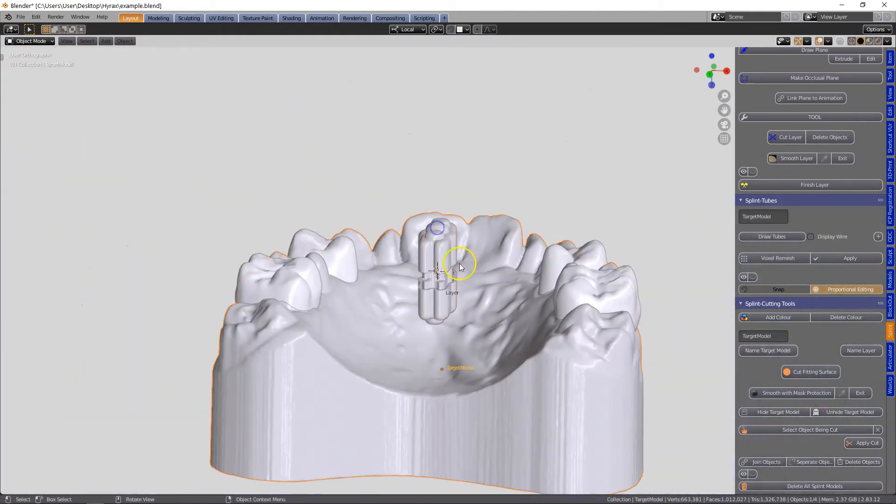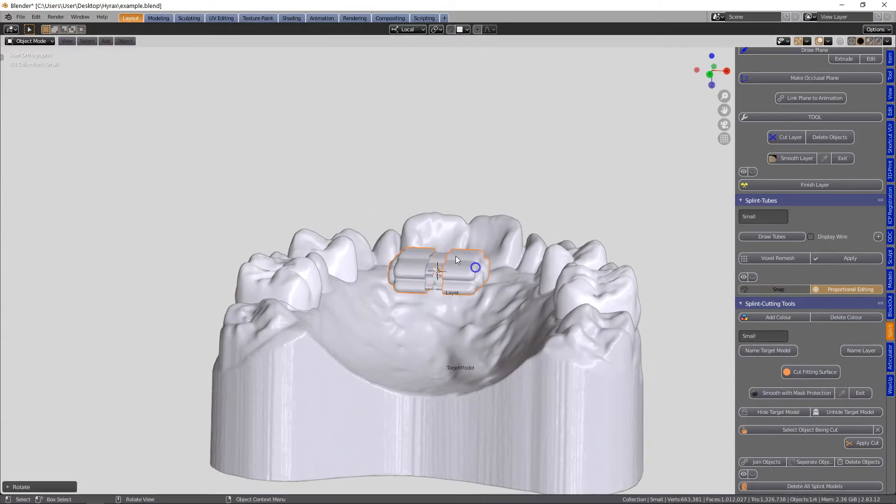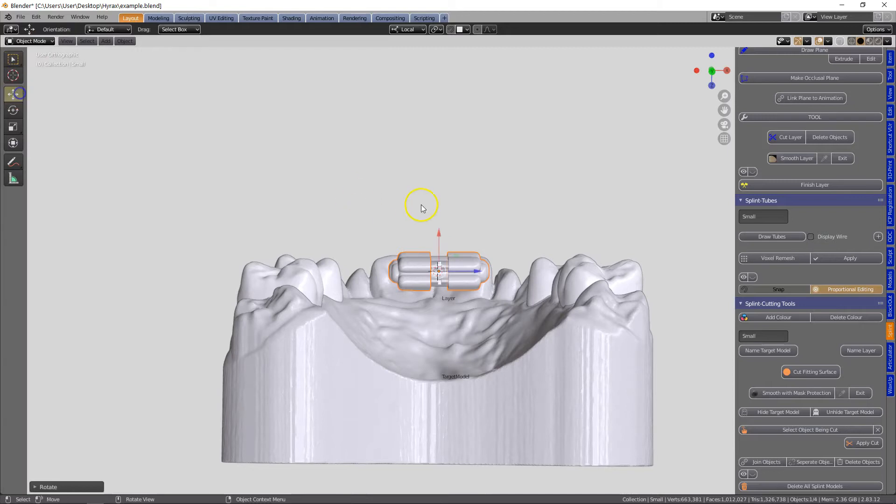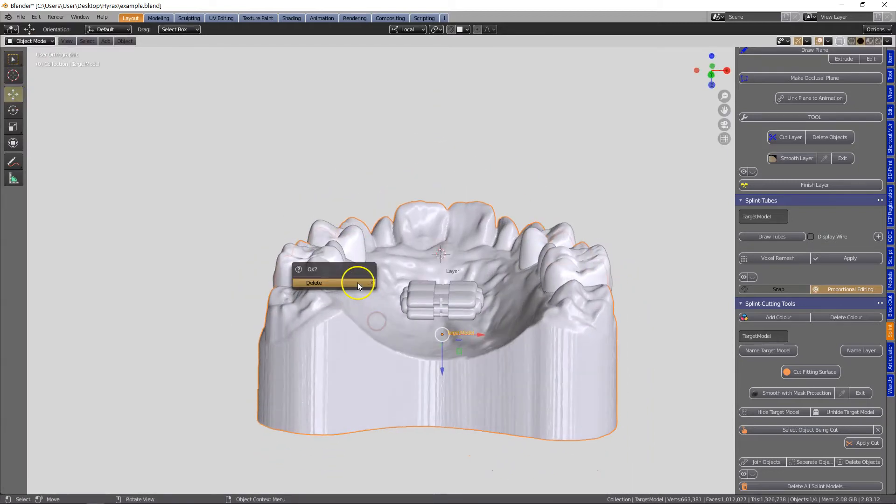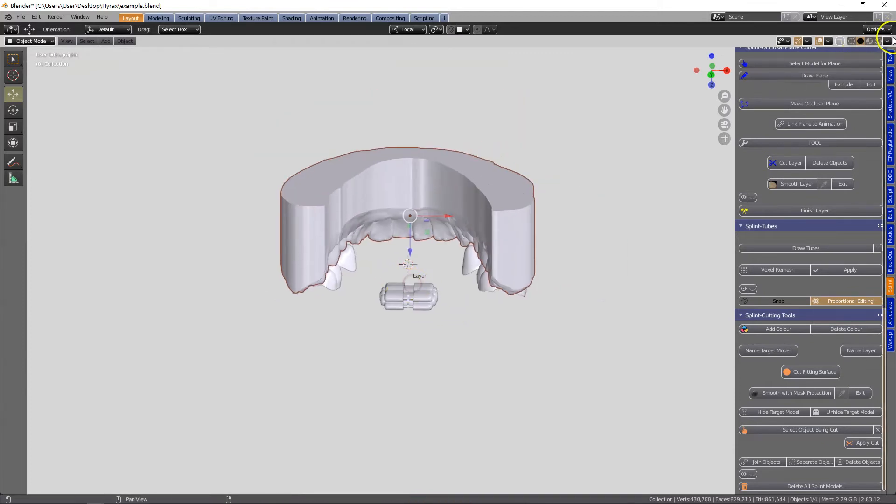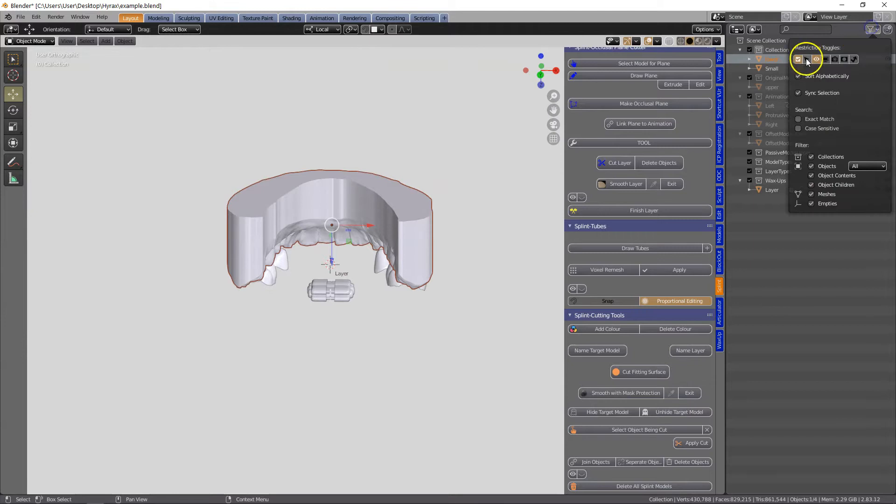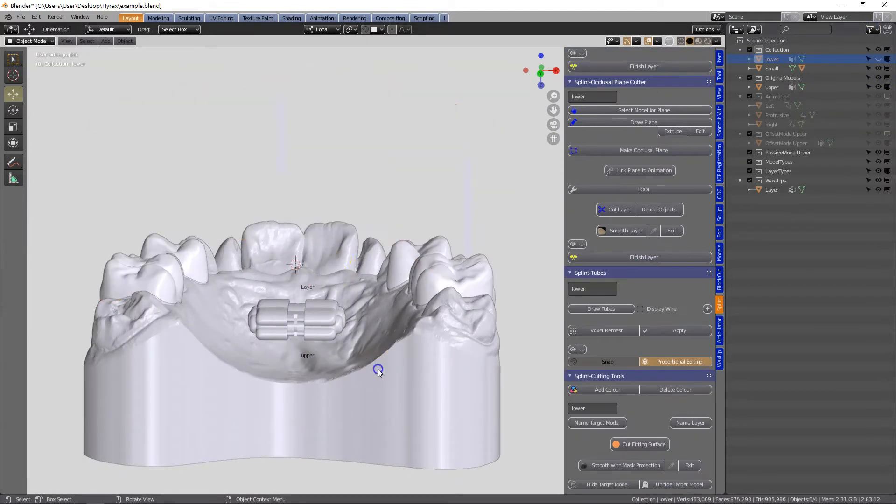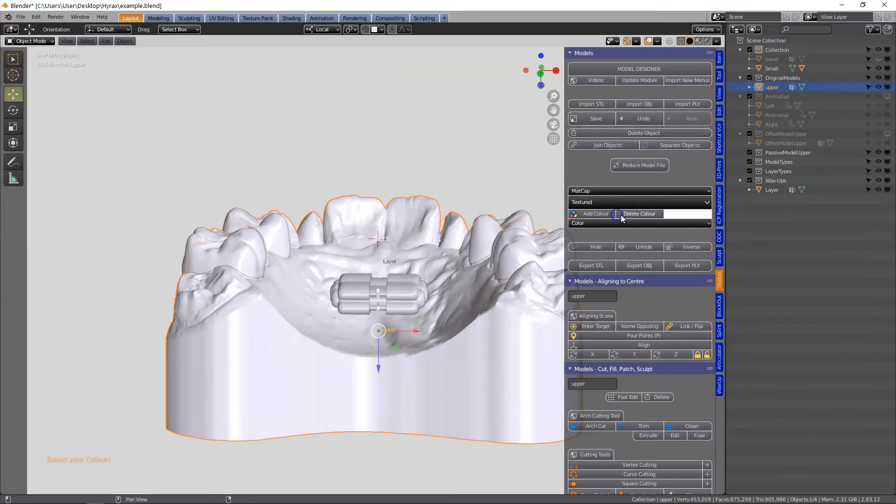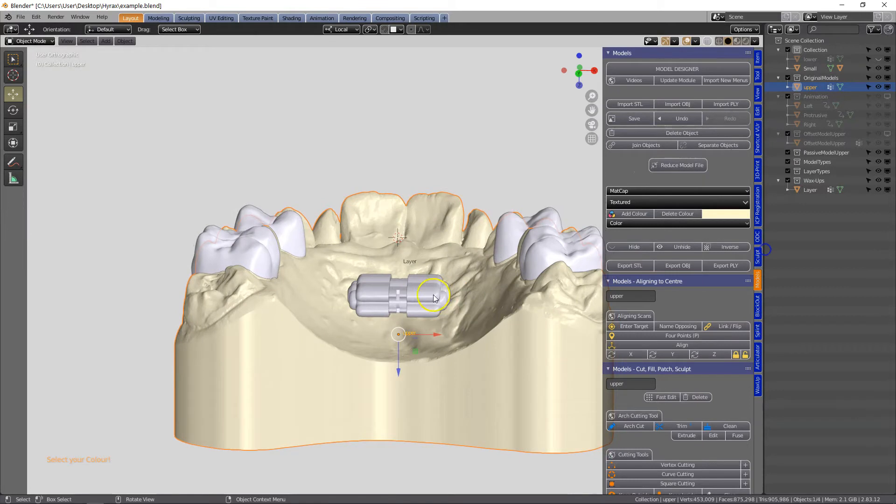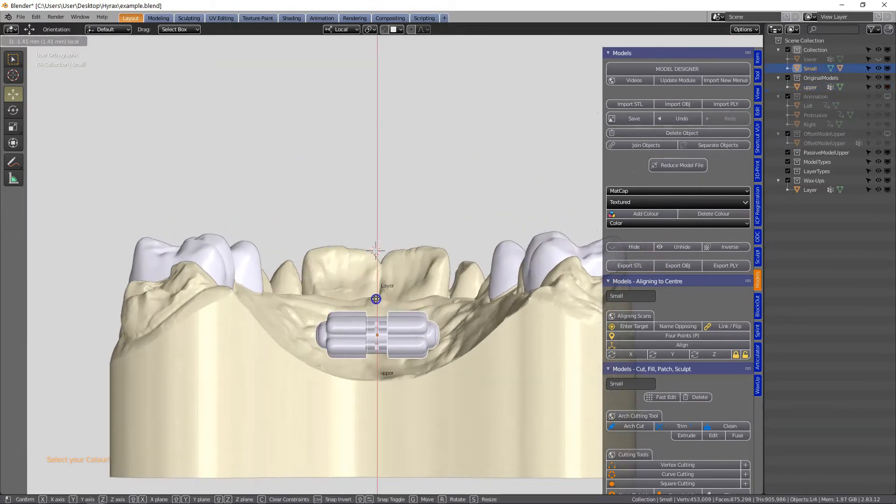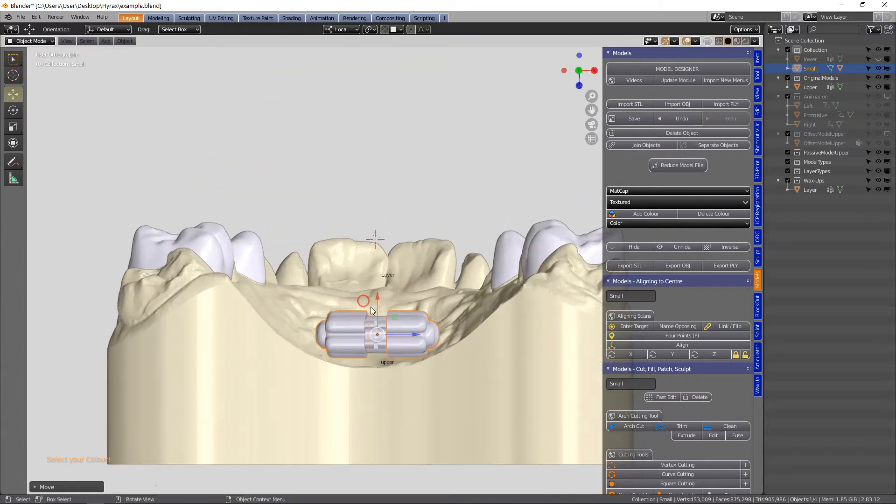Now they fit the hyrax - there's a mini and a large and a medium size and they can then be glued inside of this housing. So here what I'm doing is I'm going to be looking at the model and moving that housing downwards. I have parented the inside with this housing so as I'm moving the outside housing the inside screw moves with it.